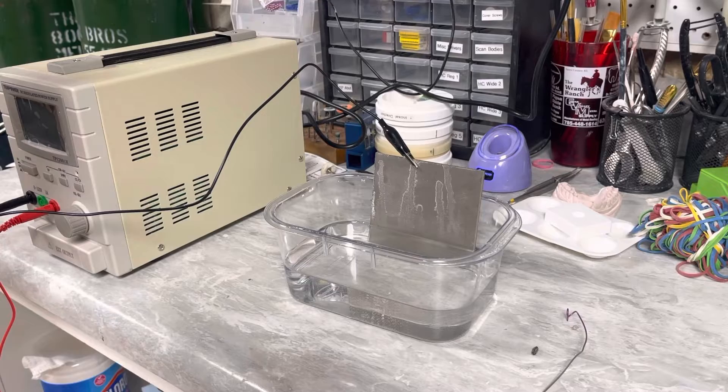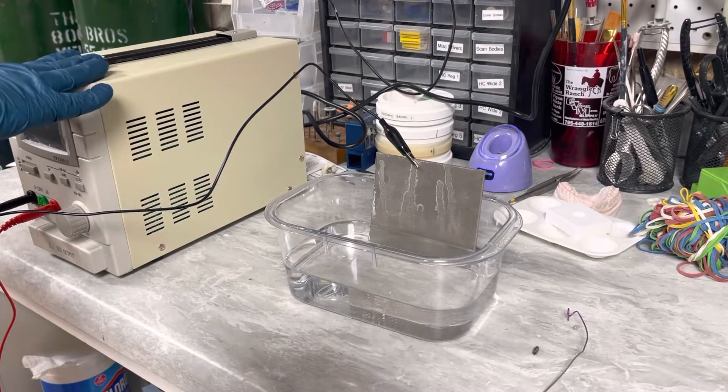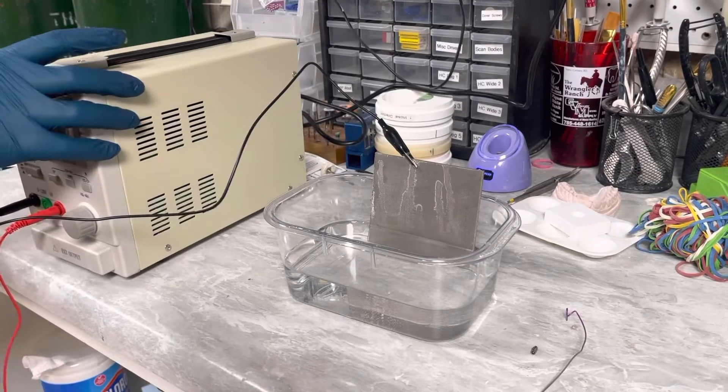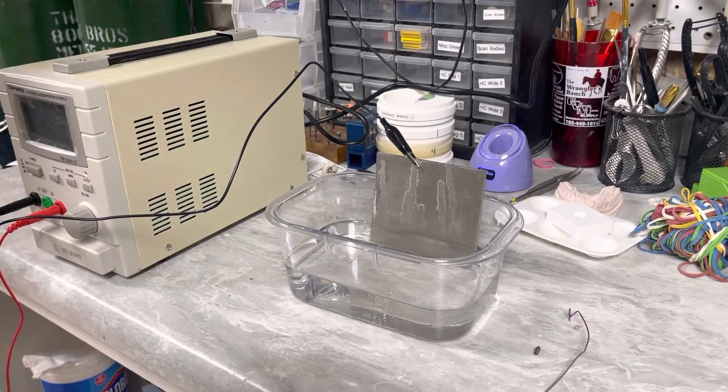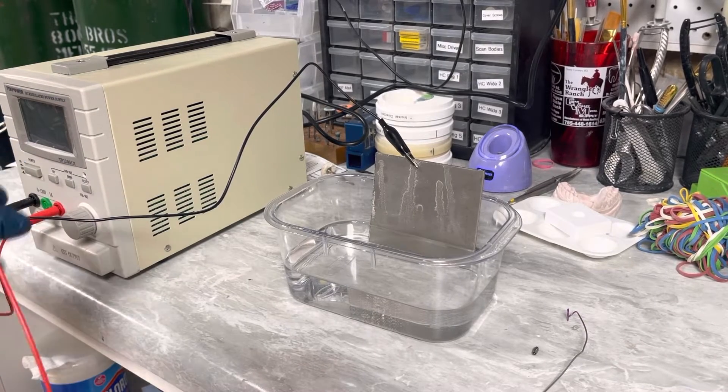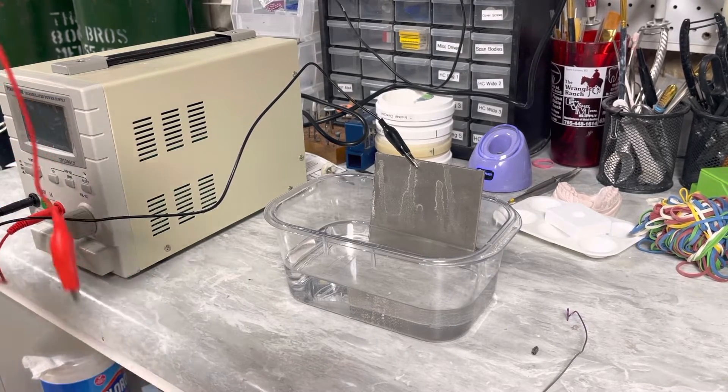Next thing you need obviously is your power supply. I just got this one off of Amazon, pretty basic unit for maybe 150 bucks something like that, and then your power supply comes with your anode and with your cathode.